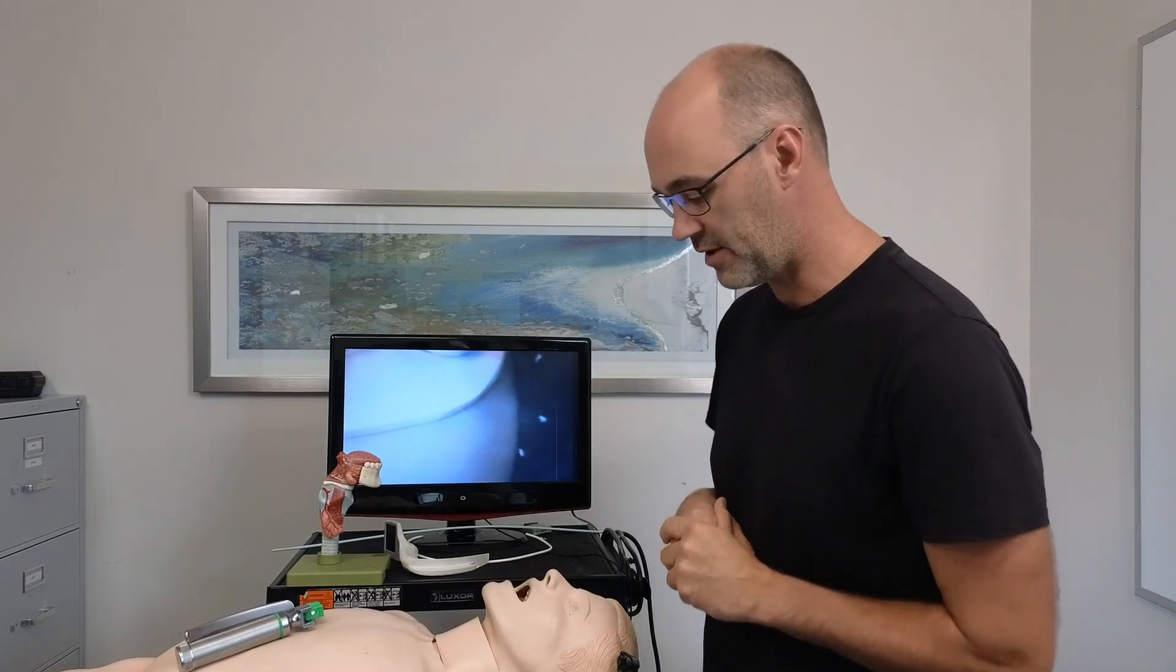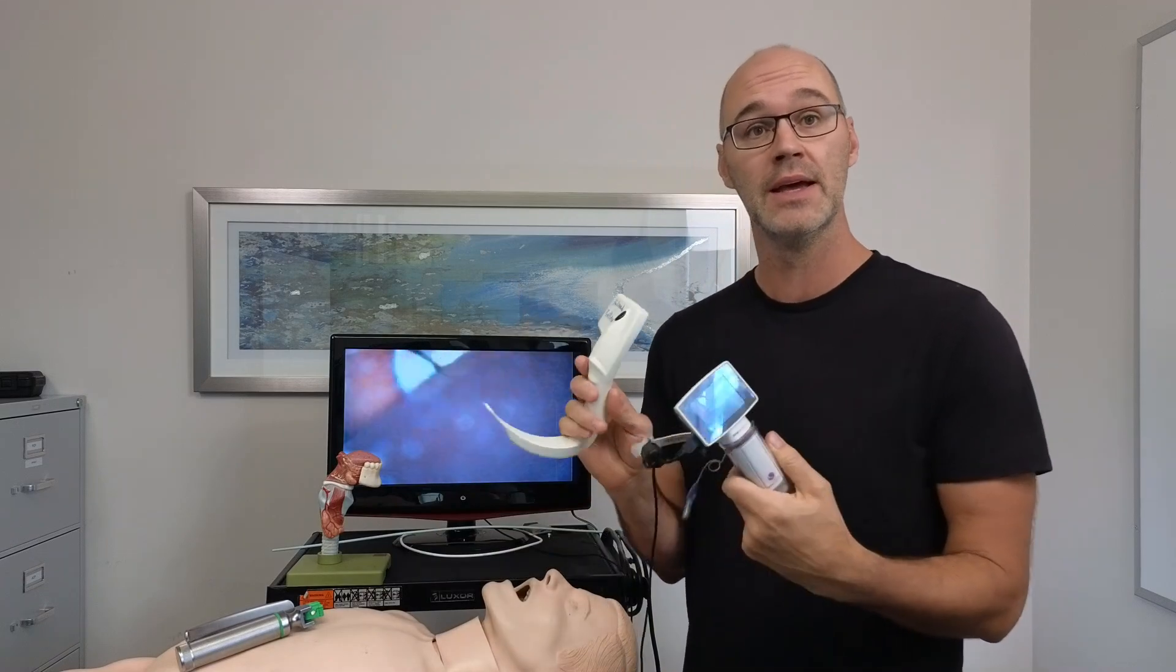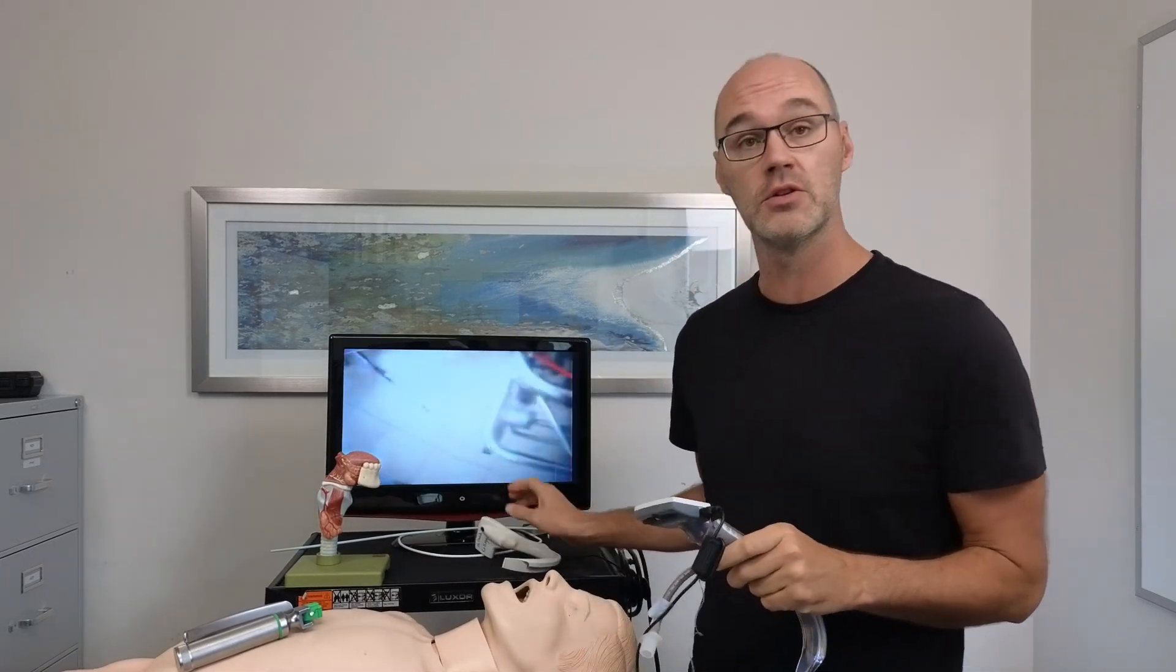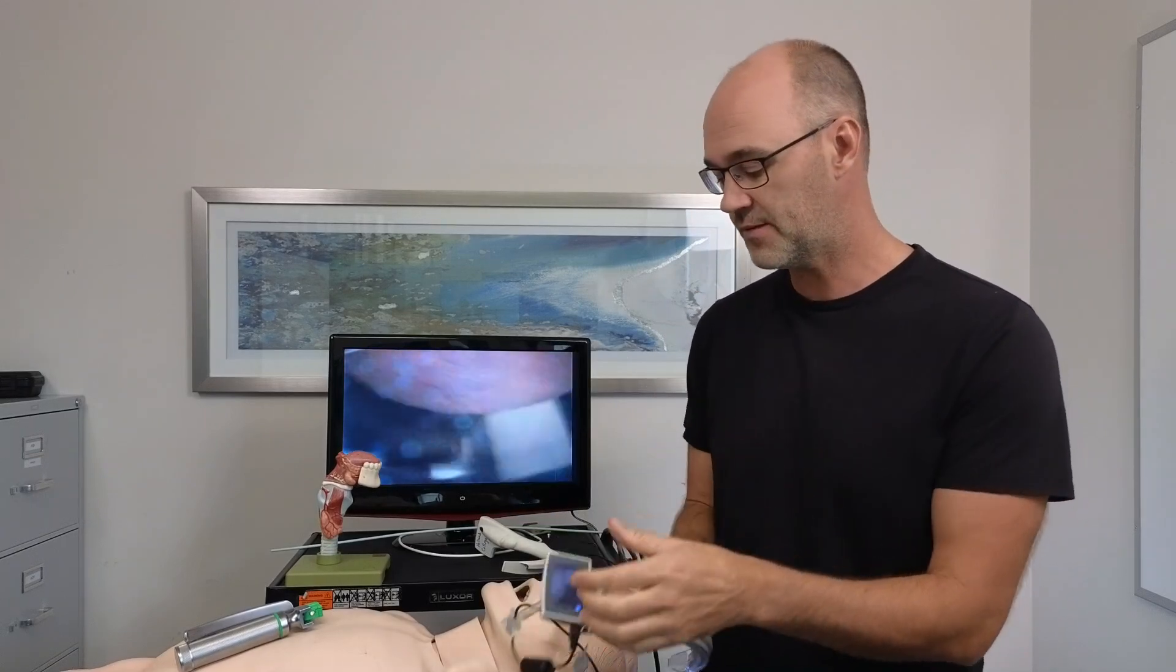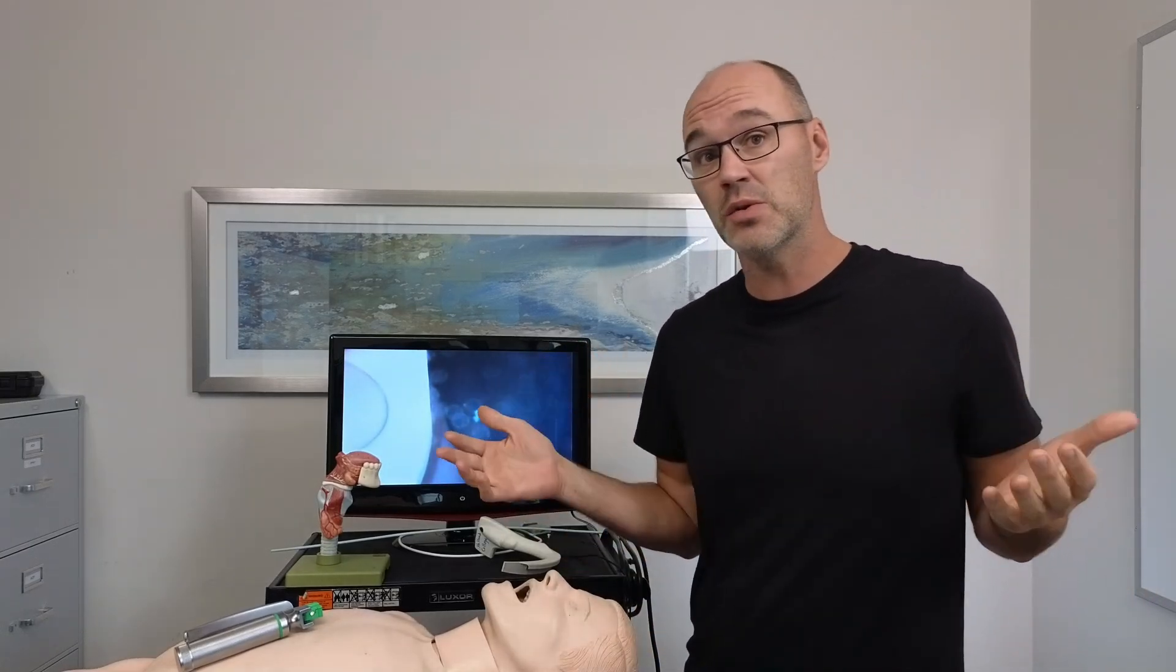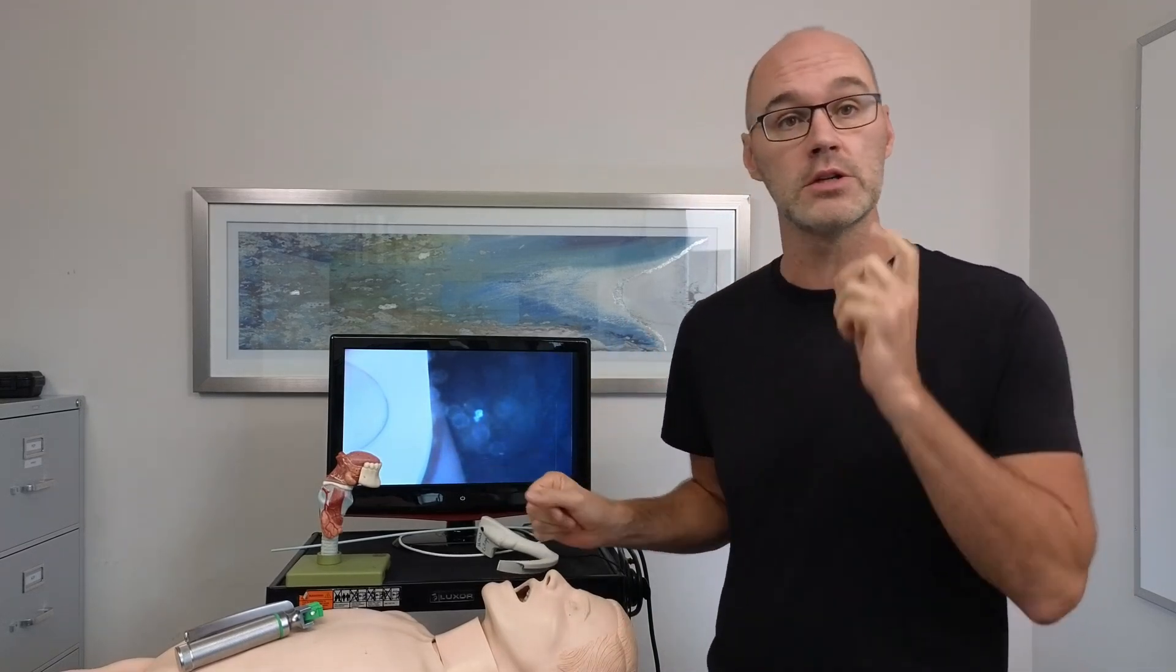Welcome back to another video. In this video, we're going to talk about video laryngoscopy. It is truly game-changing what these devices are doing and what we're seeing specifically in emergency medicine. We are now seeing that in reviews of airways in emergency medicine, two-thirds of first attempts are now made with a video laryngoscope.